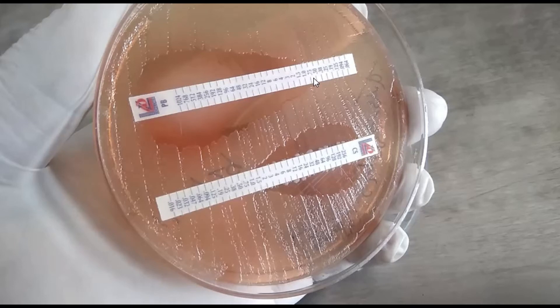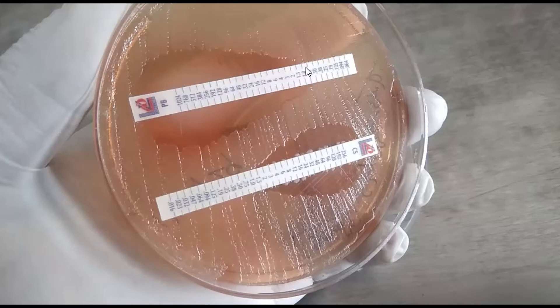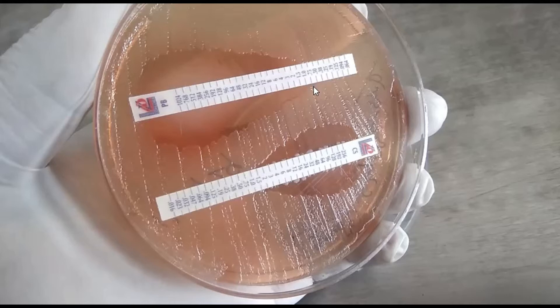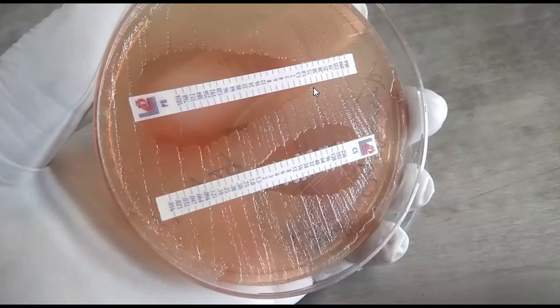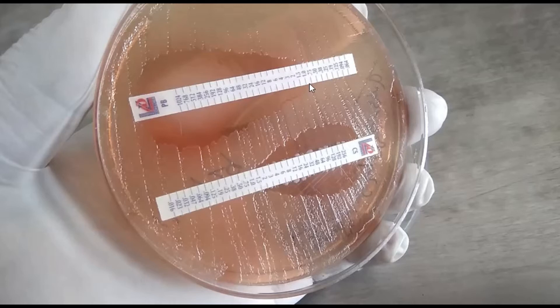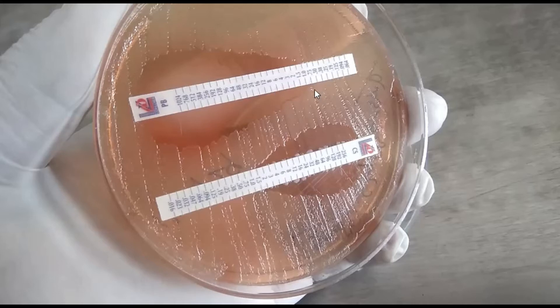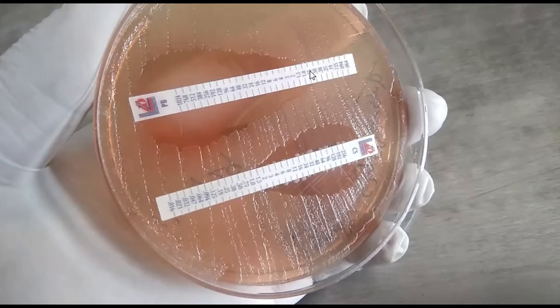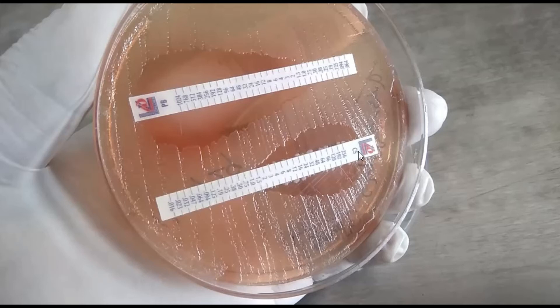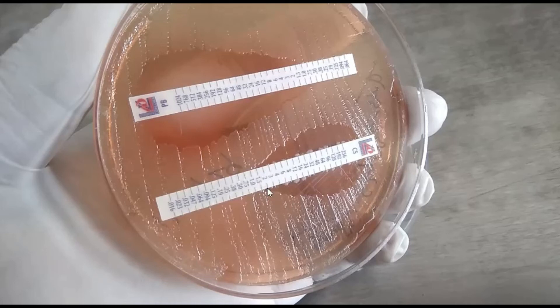For more clarity, let's move to another strip. This one is the Polymyxin B strip. From above, this one is more clear for MIC reading. Here you can see the ellipse intersects the scale at this site, so the MIC value of this Polymyxin B is 0.75 microgram per ml.